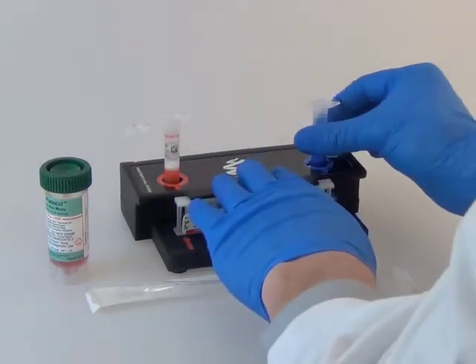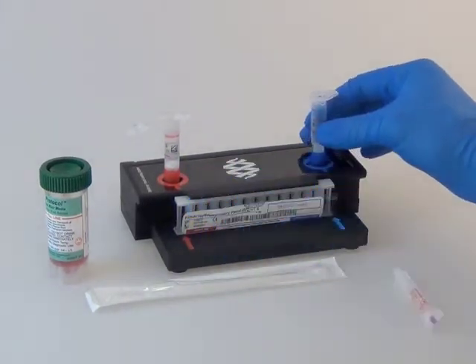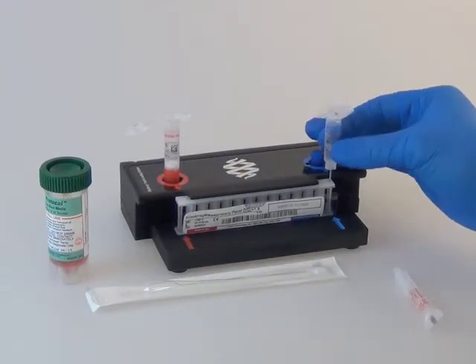Twist off the hydration injection vial, leaving the cap in the pouch loading station, and insert it into the pouch hydration port.